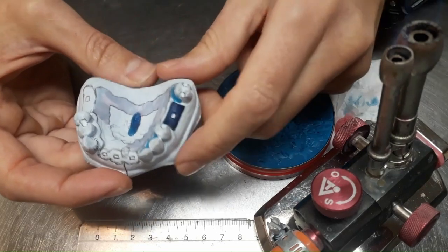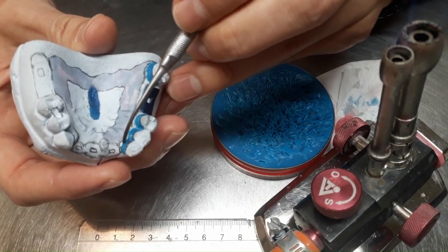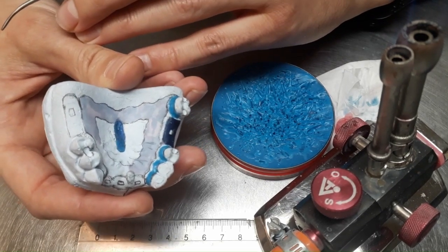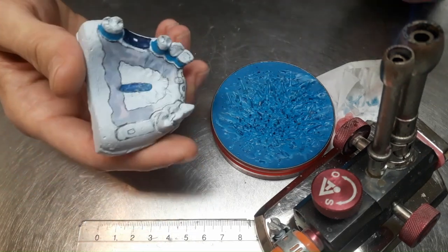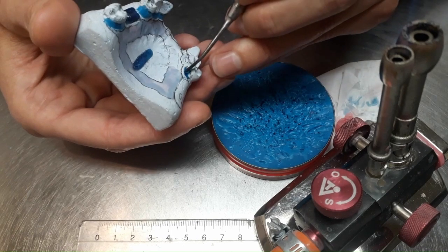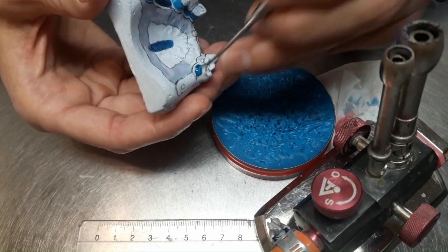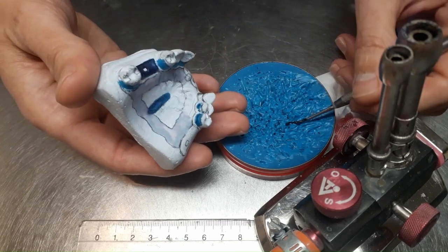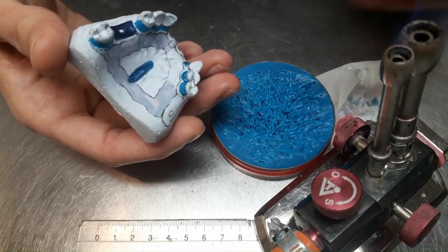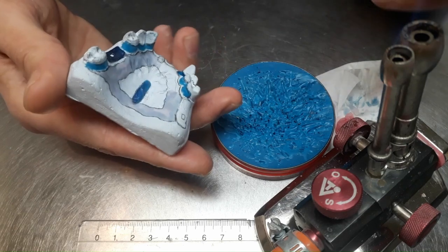And now undercutting, right? Undercuts. What does that mean? Well, like in the partial acrylic denture, we will cover with wax the undercuts, right? Those that are under the equator on the palatal side of the remaining teeth. And we do that in order to obtain a surface that is flat, like a flat cylinder surface, lateral surface, parallel, of course, to the insertion axis. That's the limit of where we shall place the counter clasps, the rigid arms of the clasps.